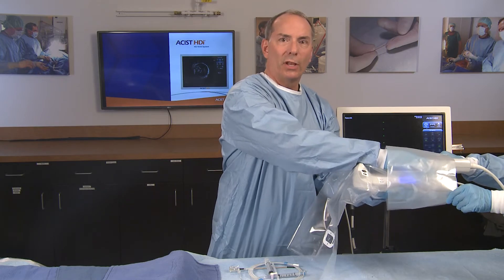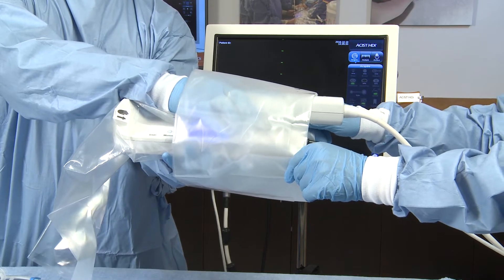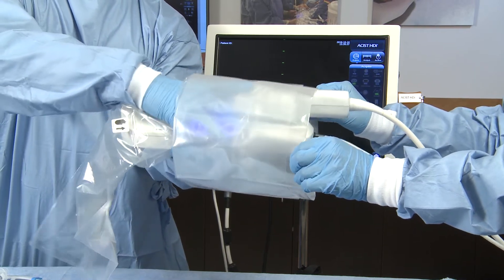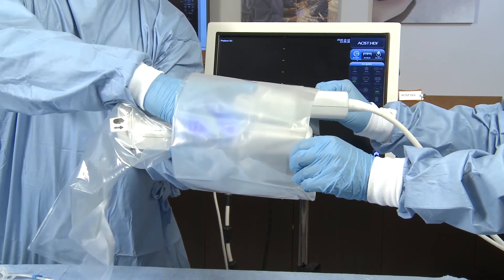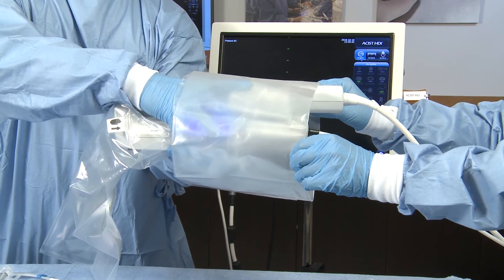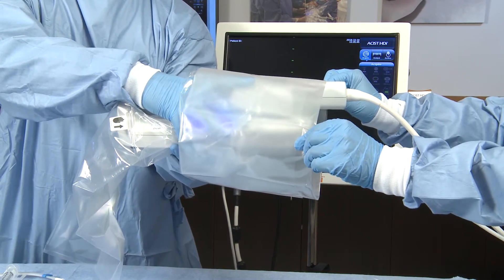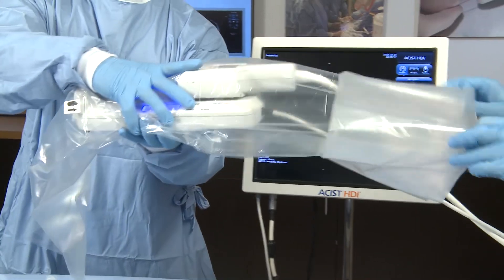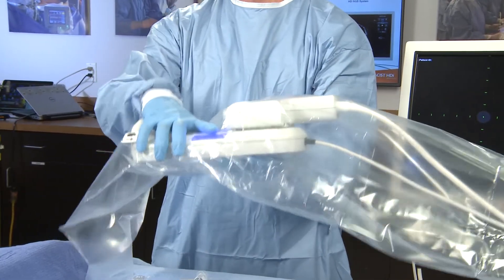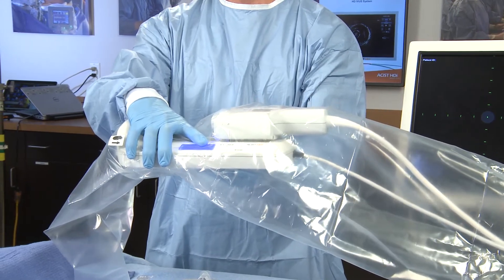After the non-sterile operator inserts the PIM and LTS into the sterile sleeve opening, the sterile operator receives the PIM and LTS assembly by grasping it through the sterile sleeve. The non-sterile operator grasps the proximal end of the sterile sleeve and pulls it over the PIM and LTS cables. Care must be taken to prevent the non-sterile cables from contacting the sterile field.